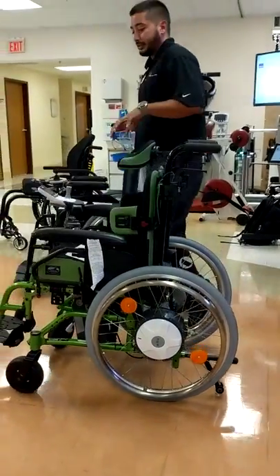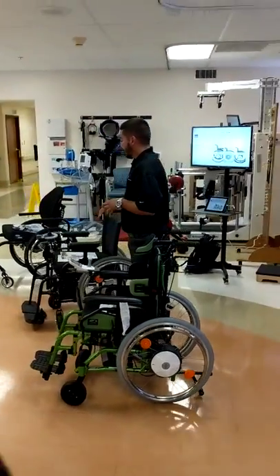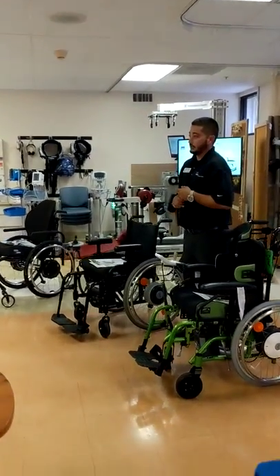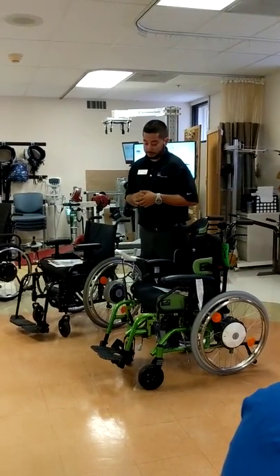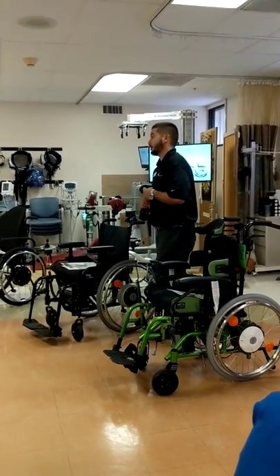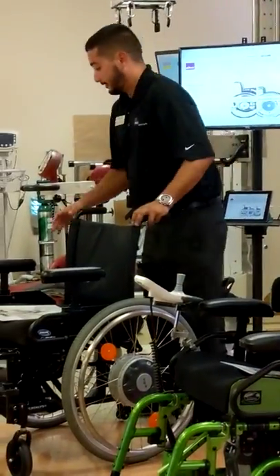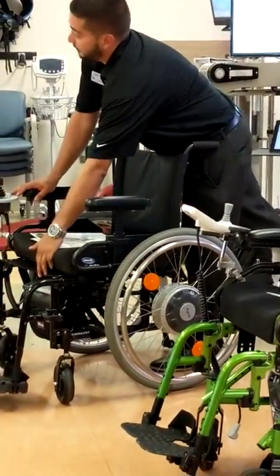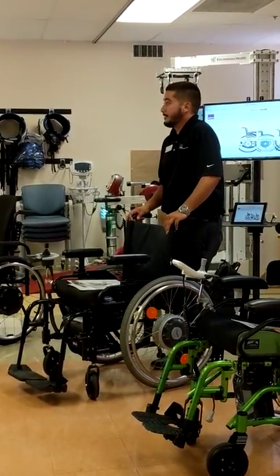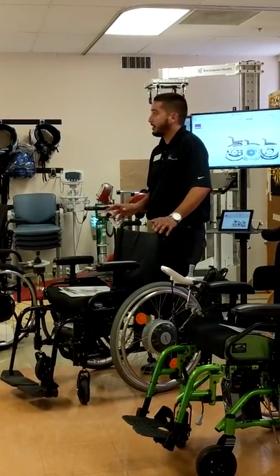Pricing for the E35 full retail is about $7,200. The eco version full retail is $4,995, just under $5,000 — and that's retail, just the power add-on. So when looking at the eFix, it's the wheels, the joystick, and the battery pack — they would need to have an existing chair, or you're ordering a chair for them. Both models have the same power: you're going to get about 4.75 miles an hour top speed.